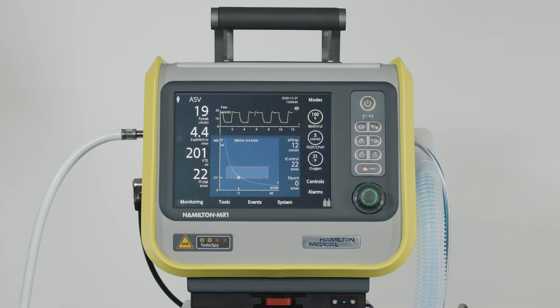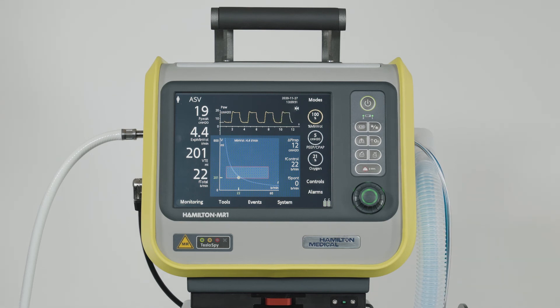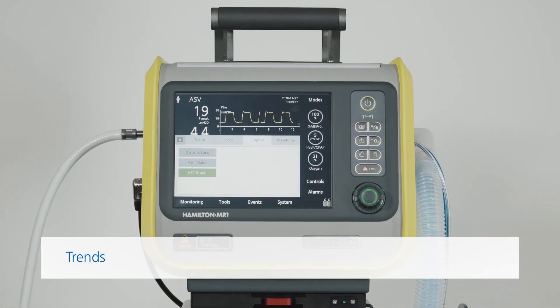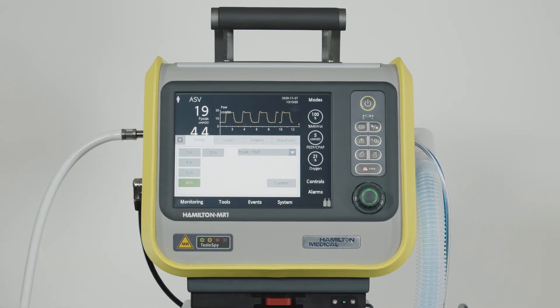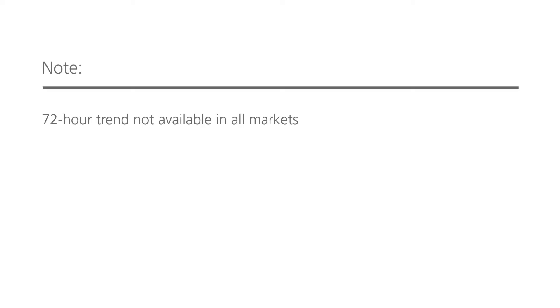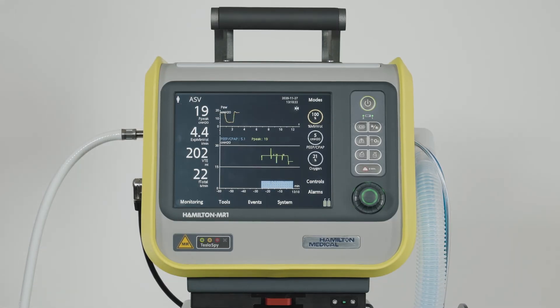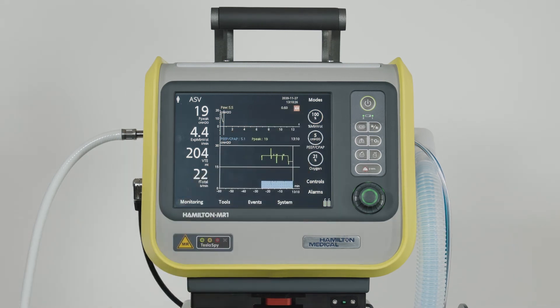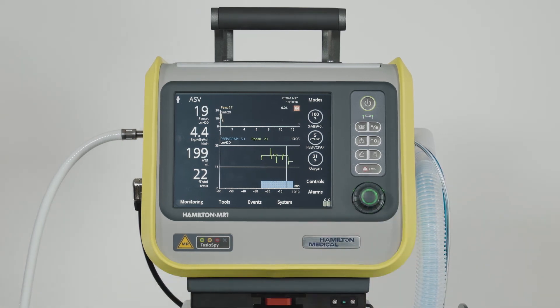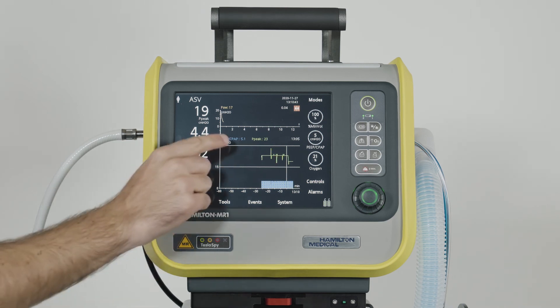From the time you switched on the ventilator, all the monitored parameters are being stored in its memory. So if you want to analyze any of this data at a later stage, you can use Trend Graphs. To display trends, touch anywhere in the graphic area, touch the Trends tab, and select the parameter or a combination of parameters you would like to analyze. Then select the desired trend time and confirm it. You can analyze a specific point or points on a trend waveform using the Freeze and Cursor Measurement function. The time axis shows you the elapsed time relative to the present and the corresponding value of the parameter you've selected.